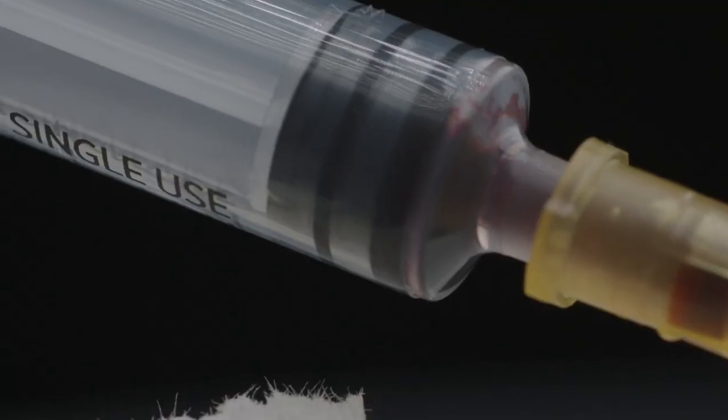Dead space is the void space that exists in a needle and syringe from the end of the plunger when it's fully depressed to the tip of the needle.